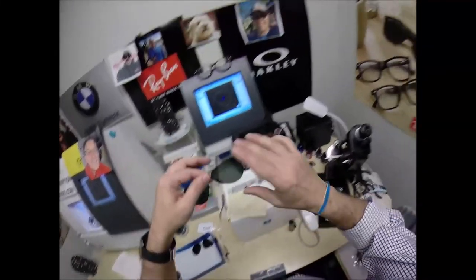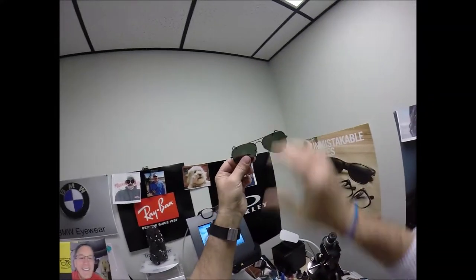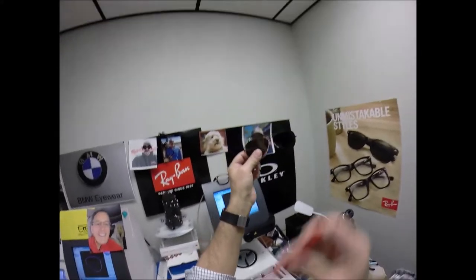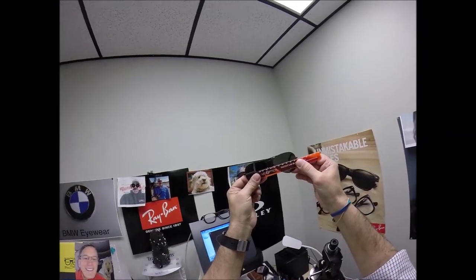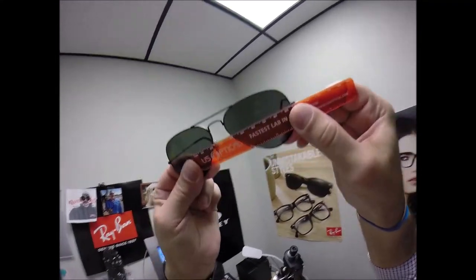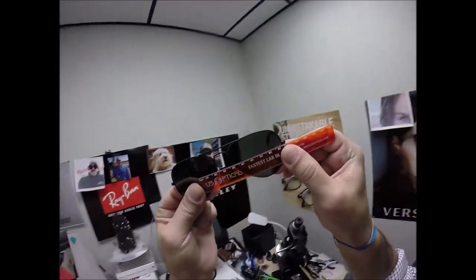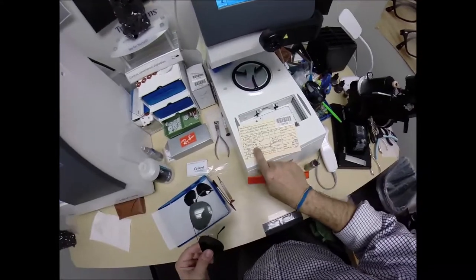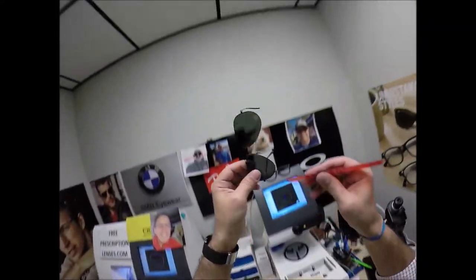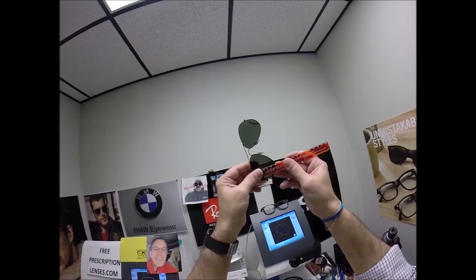PD 60, turn the core, actually this is the part where I find a white space and I'm going to hold my PD stick against my thumb and when we hold it up to the left lens we are getting 60mm so that is cut perfectly. Can you guys see that? You guys paying attention? Let's check.